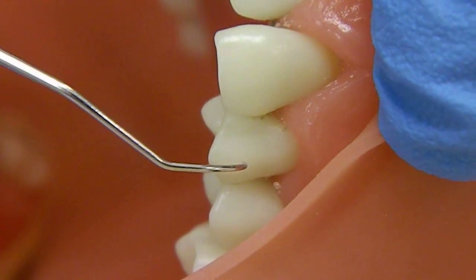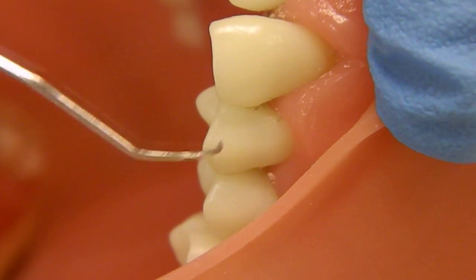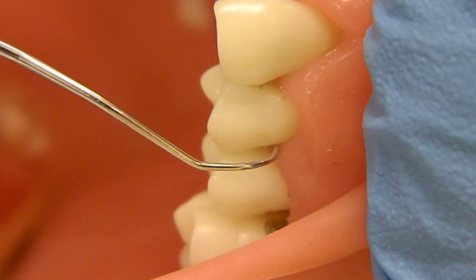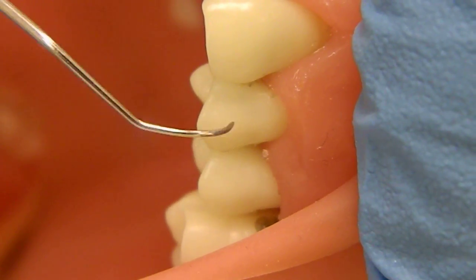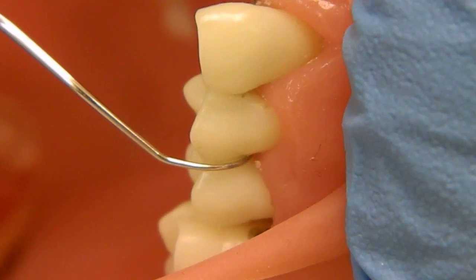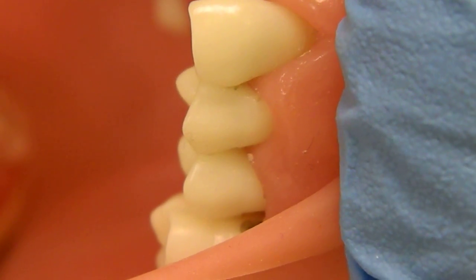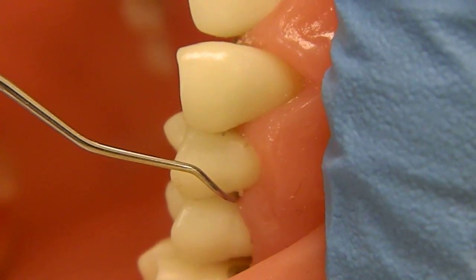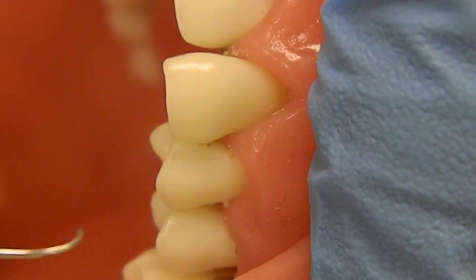If I go to number 13, number 12, or 13, any tooth, we are going to use the distal surface of the tooth in determining the correct working end. So here I'm going to place the tip of my instrument into the distal surface, and you can see here that it is straight up and down or parallel with the long axis of the tooth. If I flip my instrument, it's going to have that appearance of wrapping around the tooth again. So this is incorrect, and this is correct.